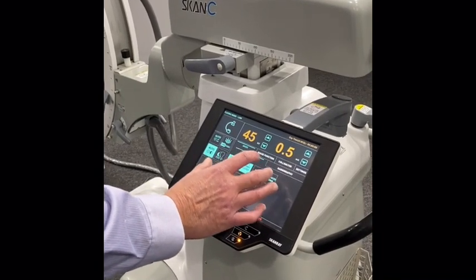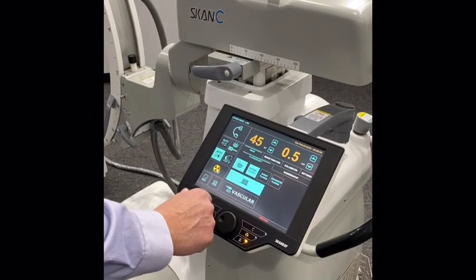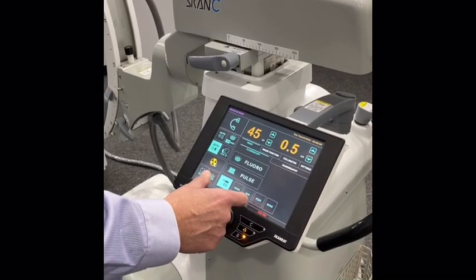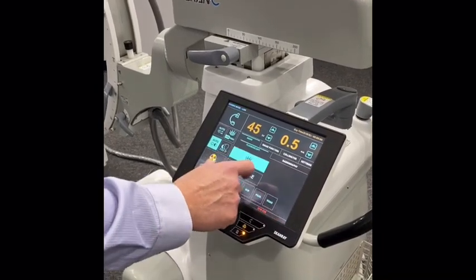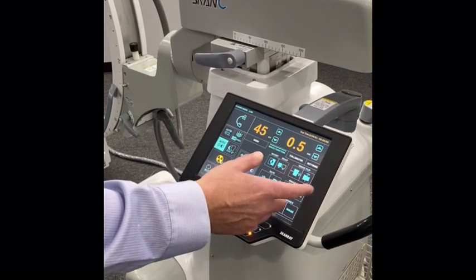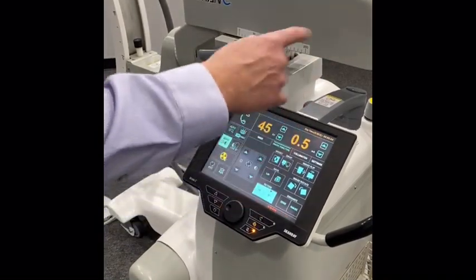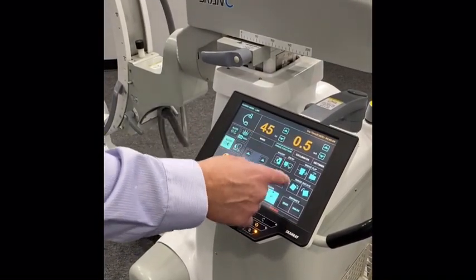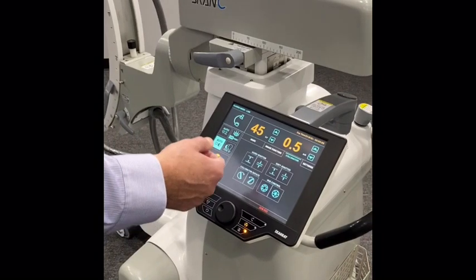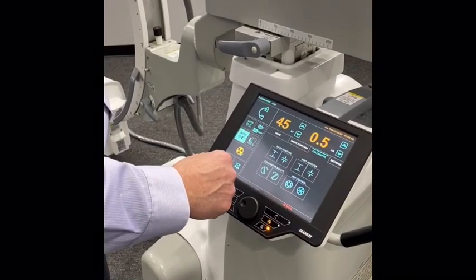Based on patient size, these settings help reduce noise and create better image quality. You have pulse mode from 2 to 8, vascular, road mapping, and digital subtraction. You have image functions where you can flip and rotate images. There's an edge feature — really cool for orthopedics — it will outline the bone, and if there's any metal it will show you exactly where the metal is protruding. You have collimator functions with actual lead collimators and a virtual collimator, so there are a lot of different collimation features.